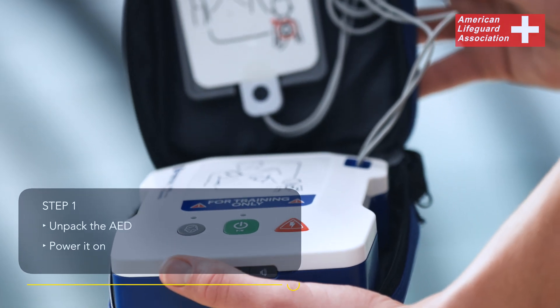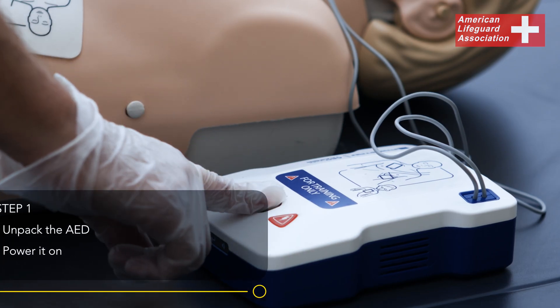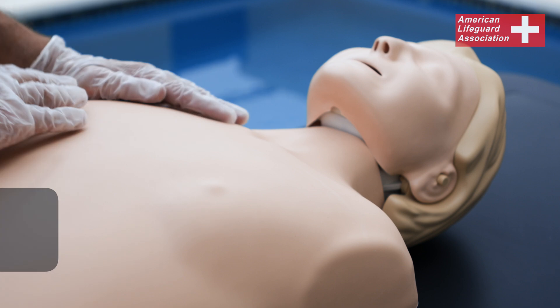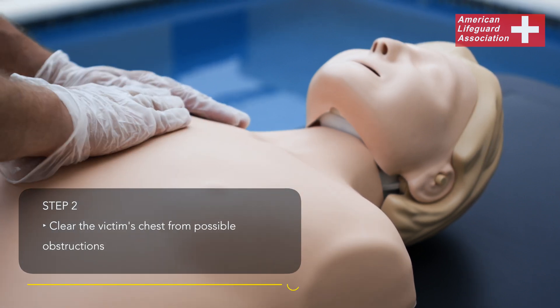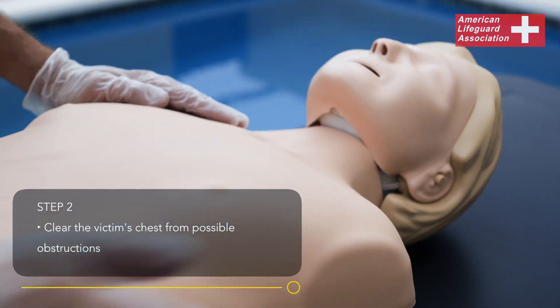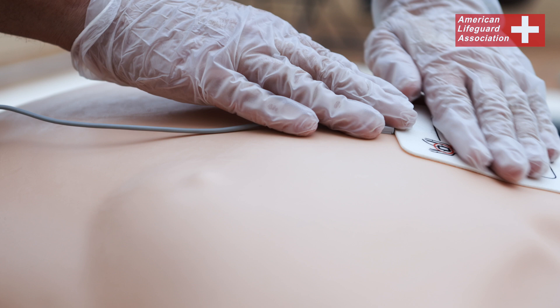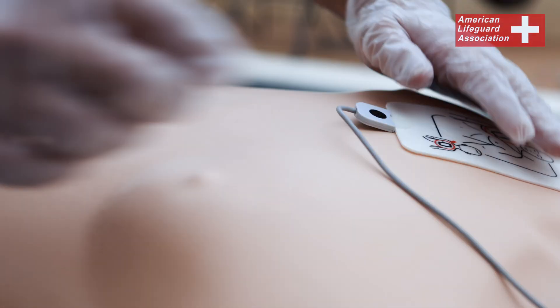Unpack the AED and power it on. Clear the victim's chest of any obstructions that could hinder the AED pad attachment, such as clothing, water, or chest hair.